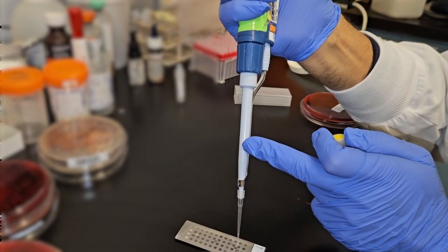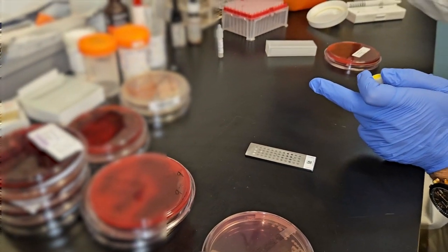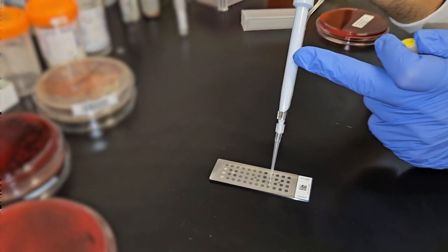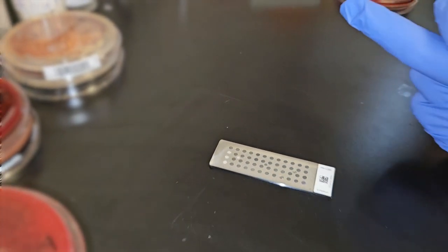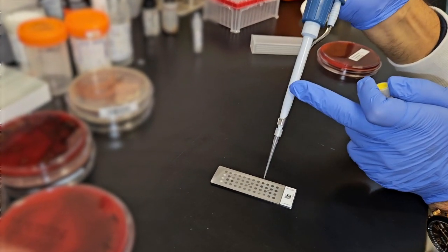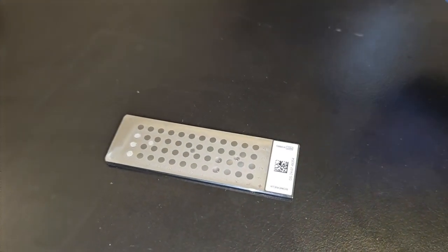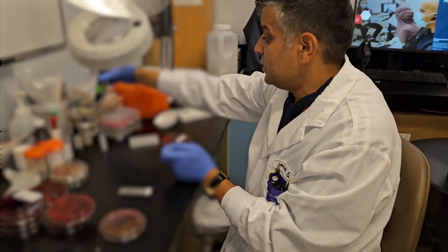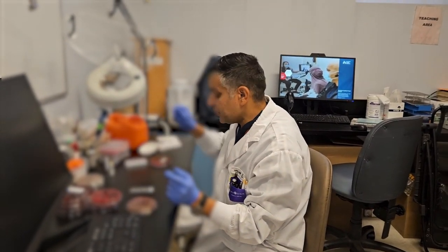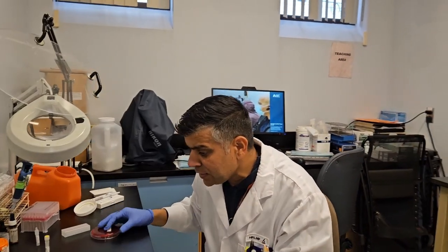So this is my control, E. coli control. I just drop 1 microliter matrix on that, and I have to repeat the same process for other patient samples as well. This is the second one, and then another is the third one. So we have to wait until the smear air dries up. When it is dry, we can load this slide onto the MALDI-TOF instrument, which we're gonna show after this. Now let's go to the MALDI-TOF instrument and see what it looks like and how it functions.